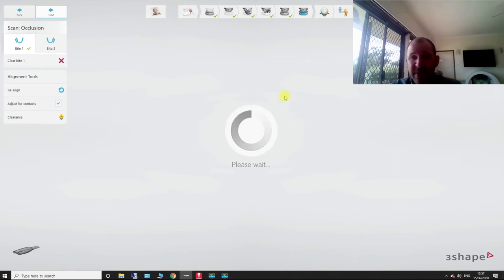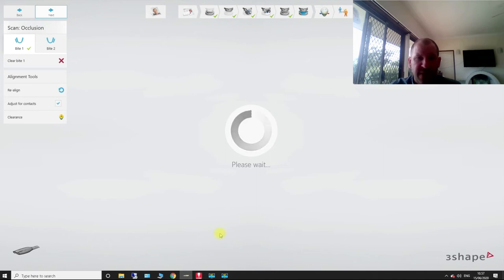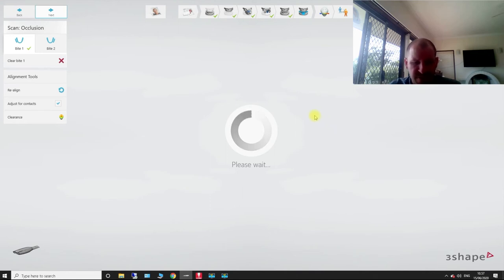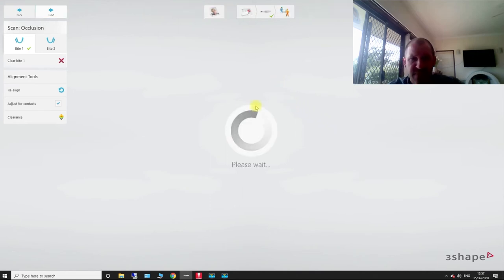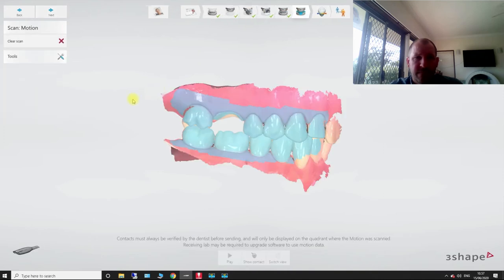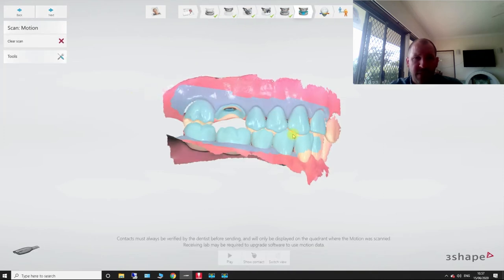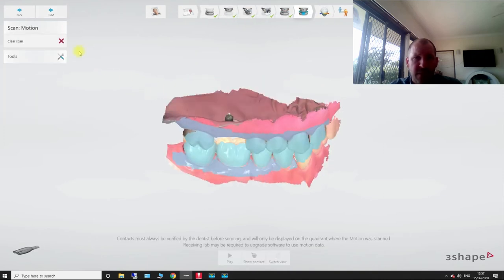So that's pretty much all the full workflow for doing an implant crown. So now my cutout diameters, I'll show you what they are. So that's a pretty good cutout diameter that I've got there. Bear with this. Let's go back into the bite step.